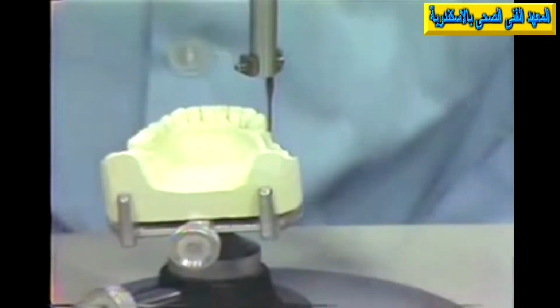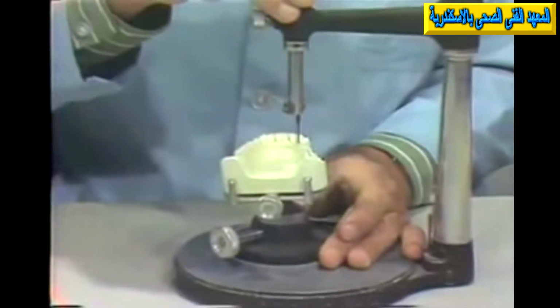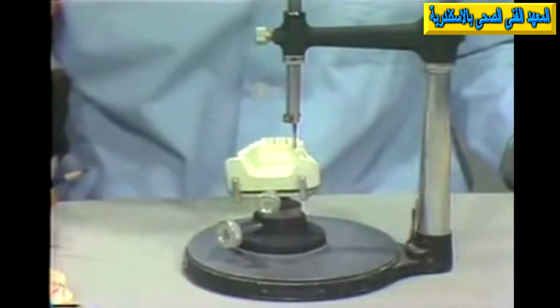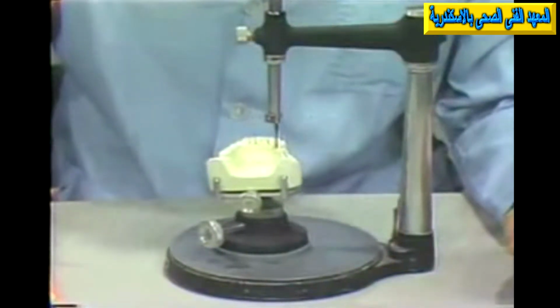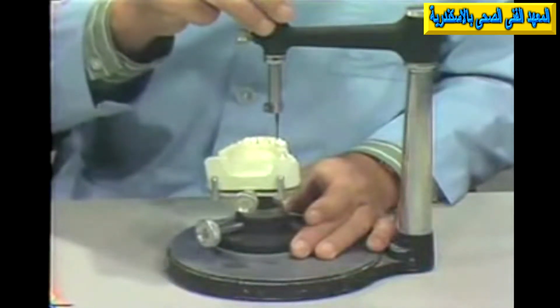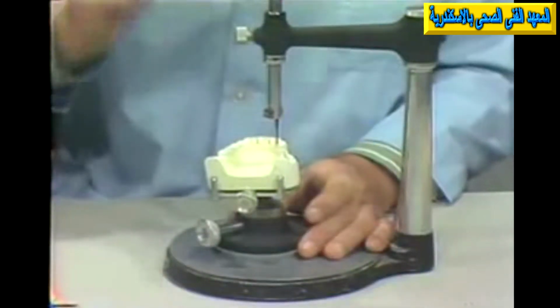But before we could finalize this path, we'd have to consider other things. The guiding plane and the reciprocal area on the opposite side must also be favorable. That is, we want to have it non-retentive as far as the reciprocal arm goes, so we'd have to position this above the height of contour, and we preferably would like to have a flat plane which would allow this appliance or prosthesis to seat to place, engaging the tooth about the same time that the clasp retentive arm on the opposite side would engage it. Let me move this just a little bit here and see if we can show parallelism.